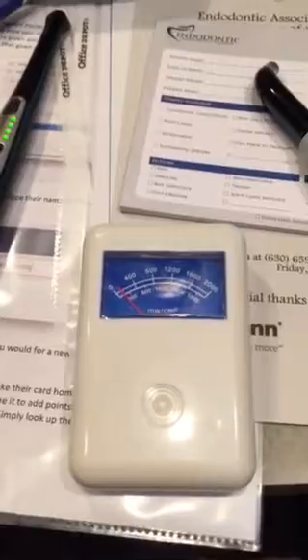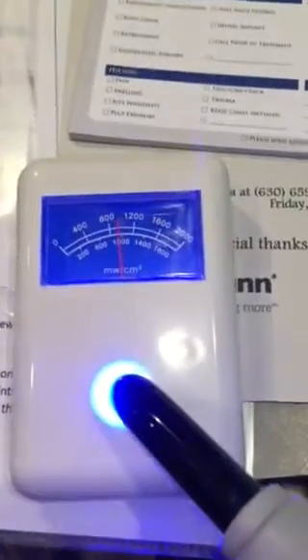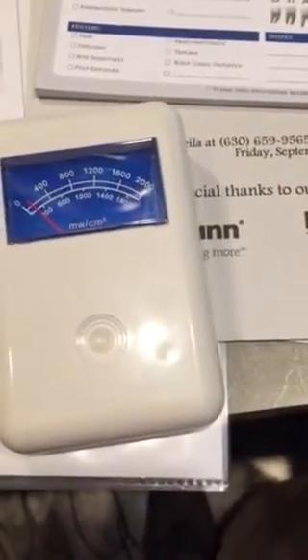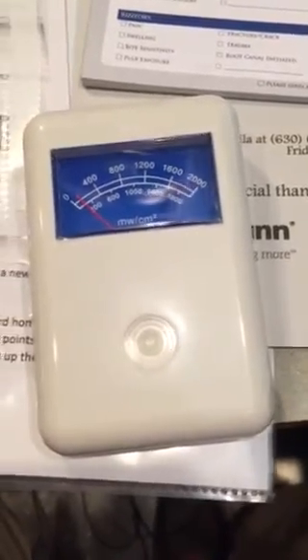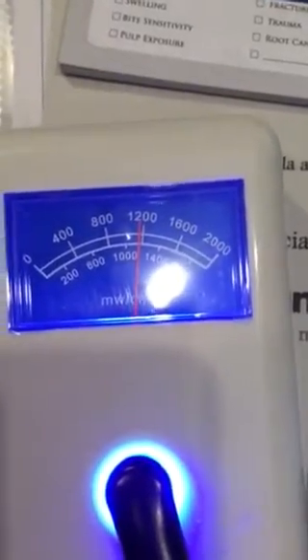I've already done this so I kind of know where the numbers are going to fall. The sensor is bouncing — it pulses above and under a thousand. The Velo is definitely the strongest. There we go — it gets up to 1200 when I have it positioned right. Pretty darn close to 1200, so that one is definitely the strongest.